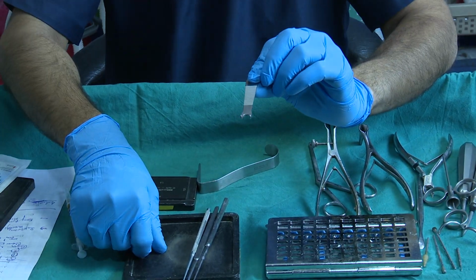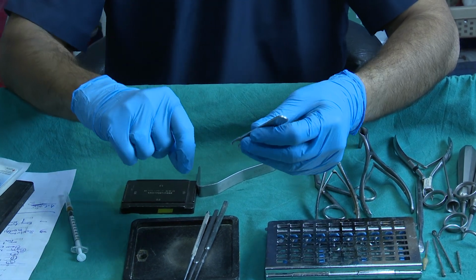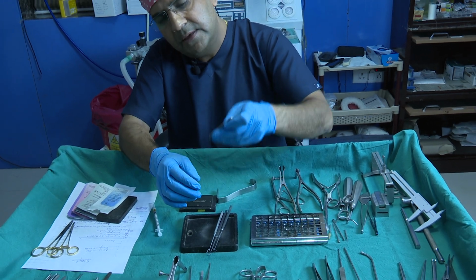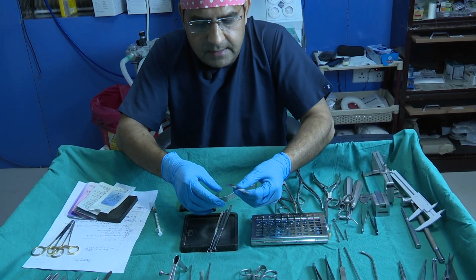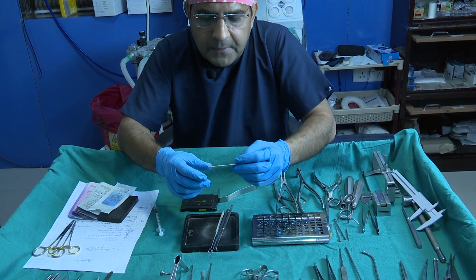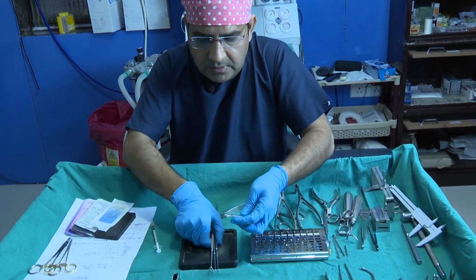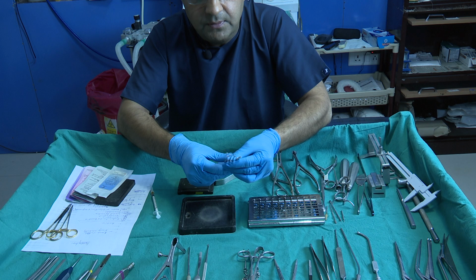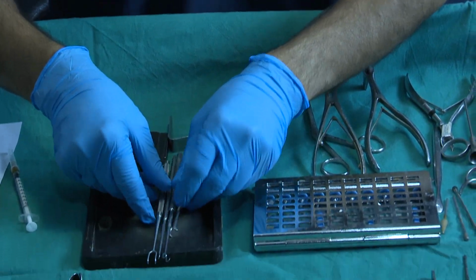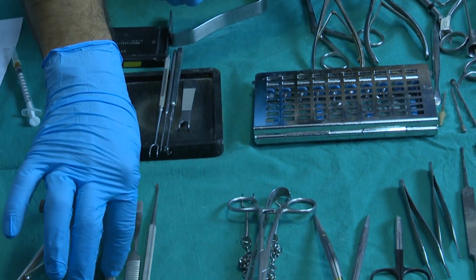And this instrument is a good instrument. We also use it when you make the infiltration for the marginal incision, for eversion of the columella, and for lifting the ala margin. We usually use this instrument for local infiltration along the marginal incision. So these hooks we usually need for the exposure.